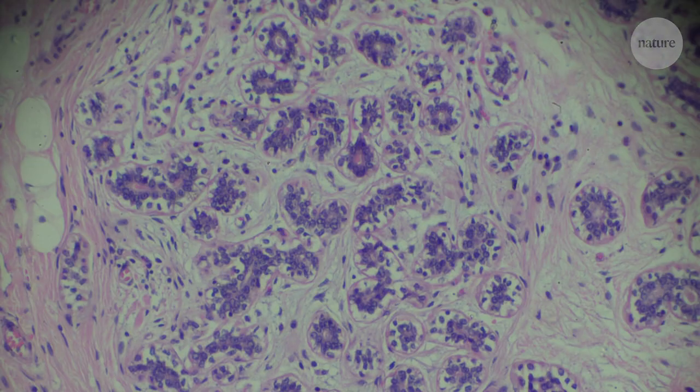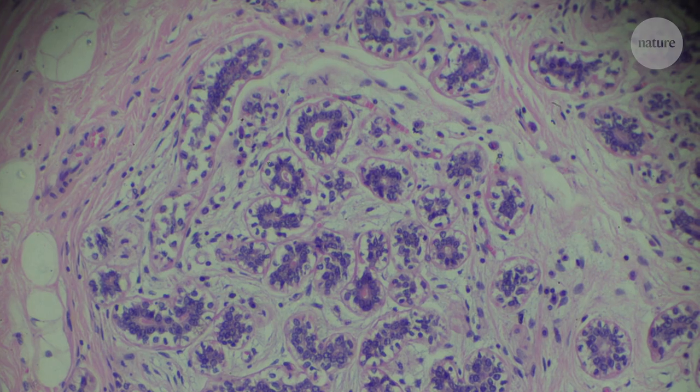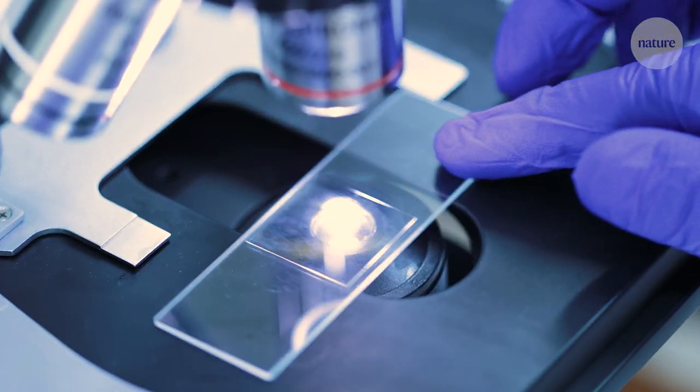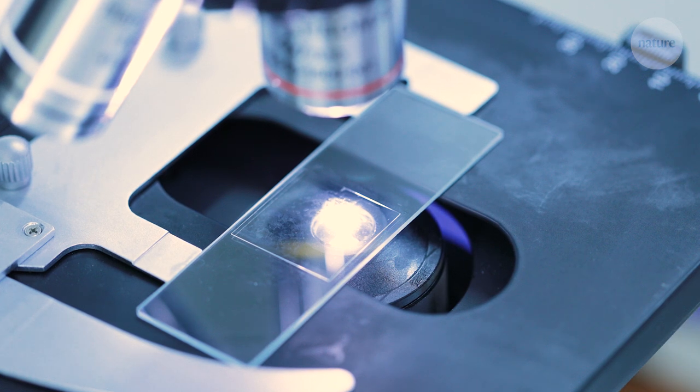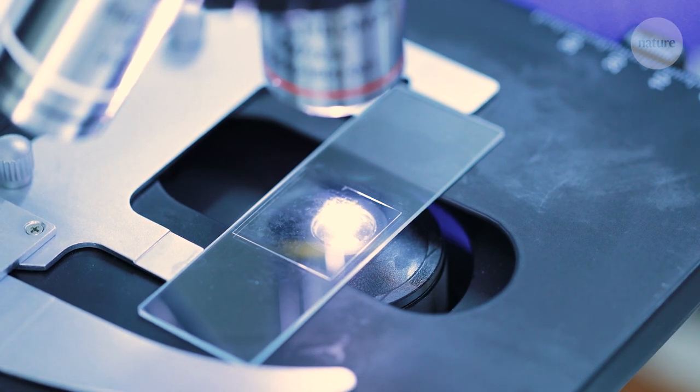Nano M slides probably won't be a replacement for other diagnostic methods, but they could provide one more tool to help pathologists standardize their diagnoses of diseases, which can sometimes be difficult to call.